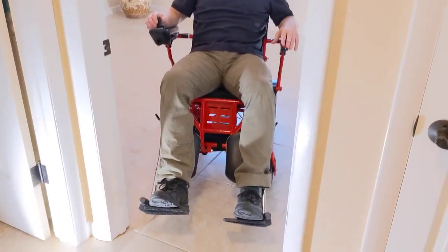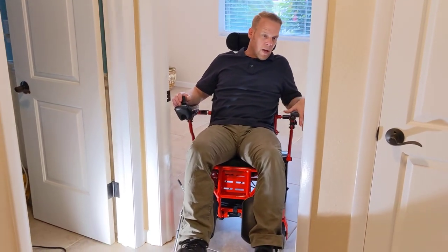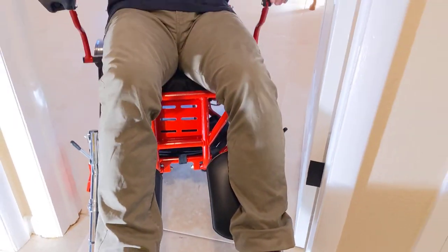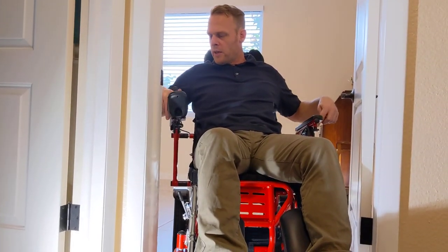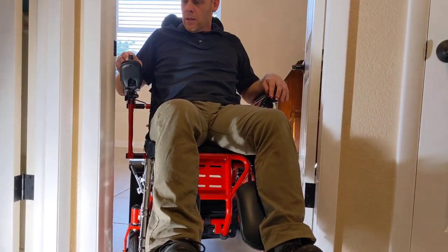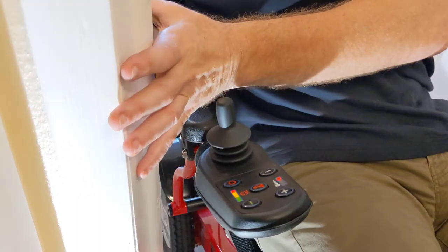I should notice that I've got plenty of space in between the feet and the door. So right now I'm really watching the feet, really watching the door. And now I've got a few pretty difficult angles to come up against here. I've got the casters of the chair themselves. This one's already kind of getting through the frame of the door here, and this other one is close behind. My feet, thank God, are already through the door. But I've got a very limited amount of space with the joystick here. I don't want to bite my knuckles, I don't want to bite the joystick, and I don't want to damage the outsides of the armrest. So at this point I'm just going to inch along. Keep in mind I had to kind of go at an angle here. Pointing out for people who have situations similar to this and are wondering how to get the chair through the doorway.